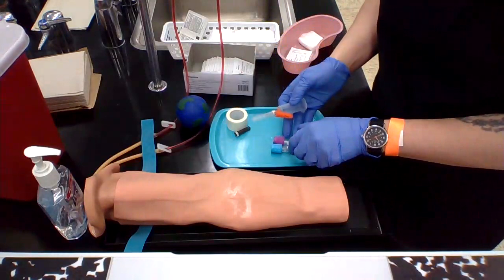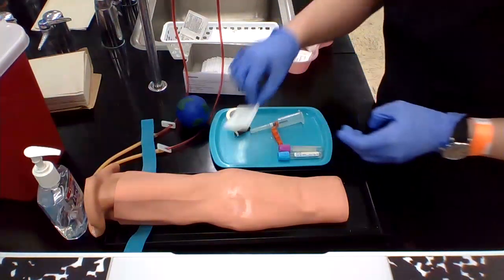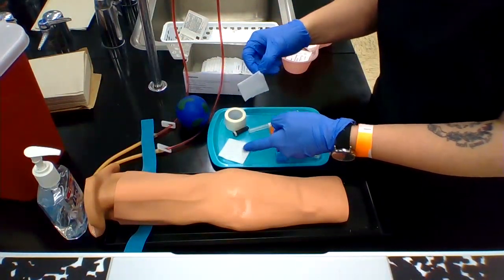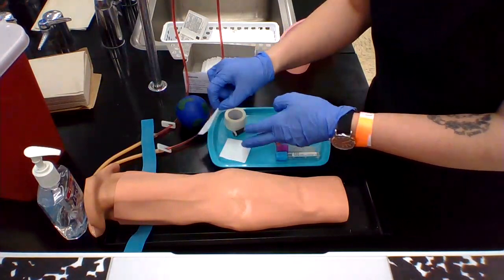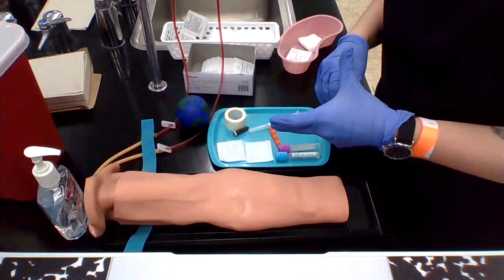Get your tubes in order. When you're actually working with the patient, I usually try to have a stack of two or three and then a stack of one, but I'm just going to use one-on-one right now so I don't waste supplies.